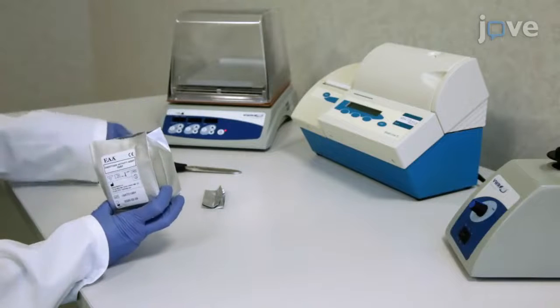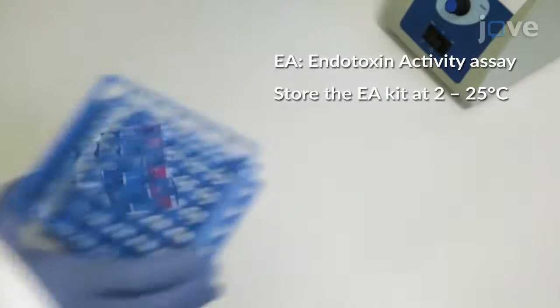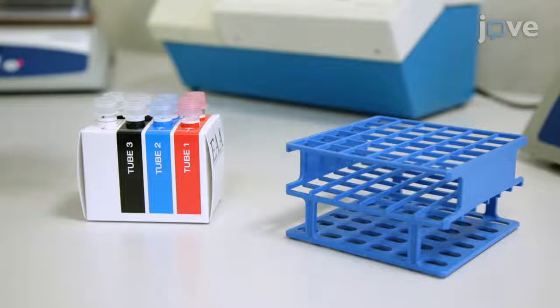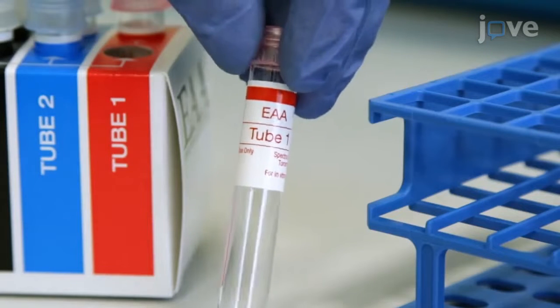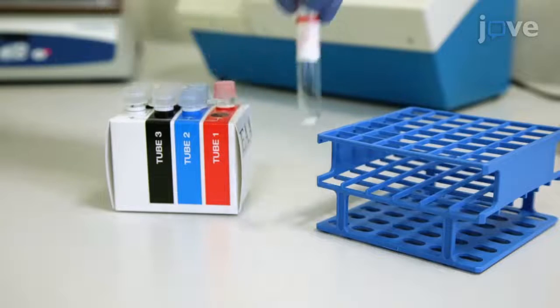To begin this procedure, set out an EA test kit and unpack the 5 different kinds of tubes. Use tube number 1, the control tube, to measure the basal activity of the nonspecific oxidative burst of patients' neutrophils in the absence of a specific antibody.